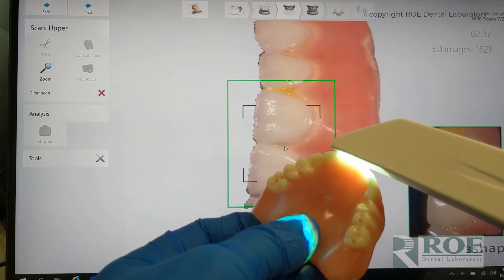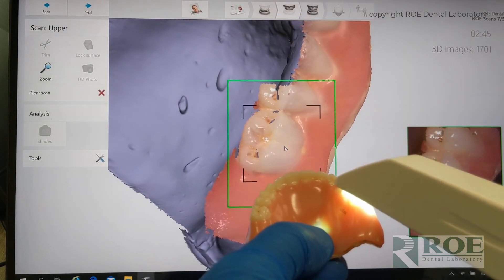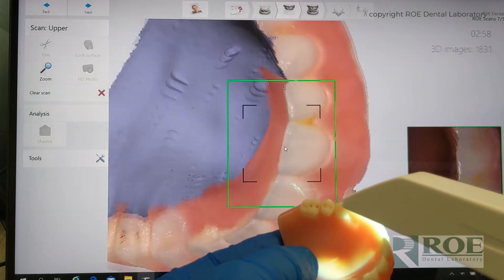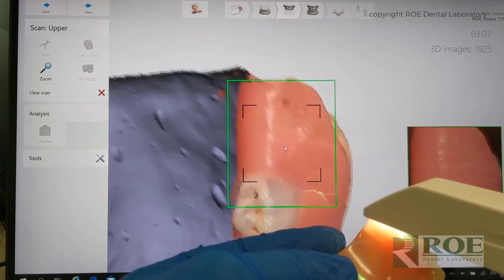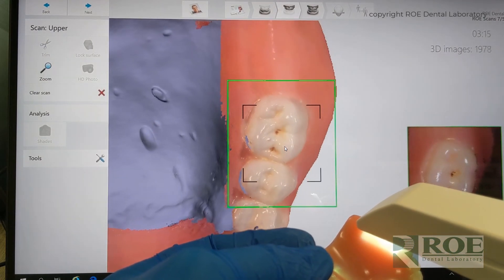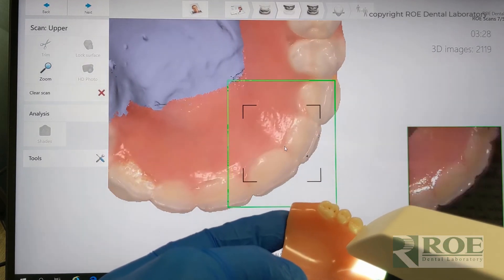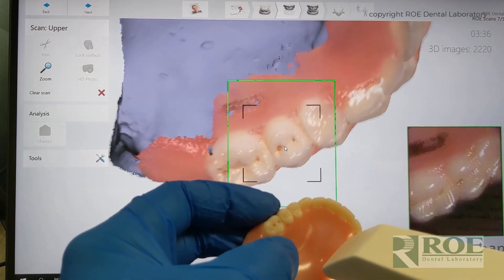The scanner is really designed to scan teeth, so this is usually not a problem. Scan the teeth, do a little rolling. You don't want to spend too much time — these scanners can only handle so many images and they start to slow down, and some scanners will even just stop and max out at a certain number of scans. Looking good. Let's get back on the teeth. What we're going to do — this is our trick — we are only going to scan the teeth and the lingual just down to a certain distance, and we're not going to worry about the palate. I'll explain why in a bit.